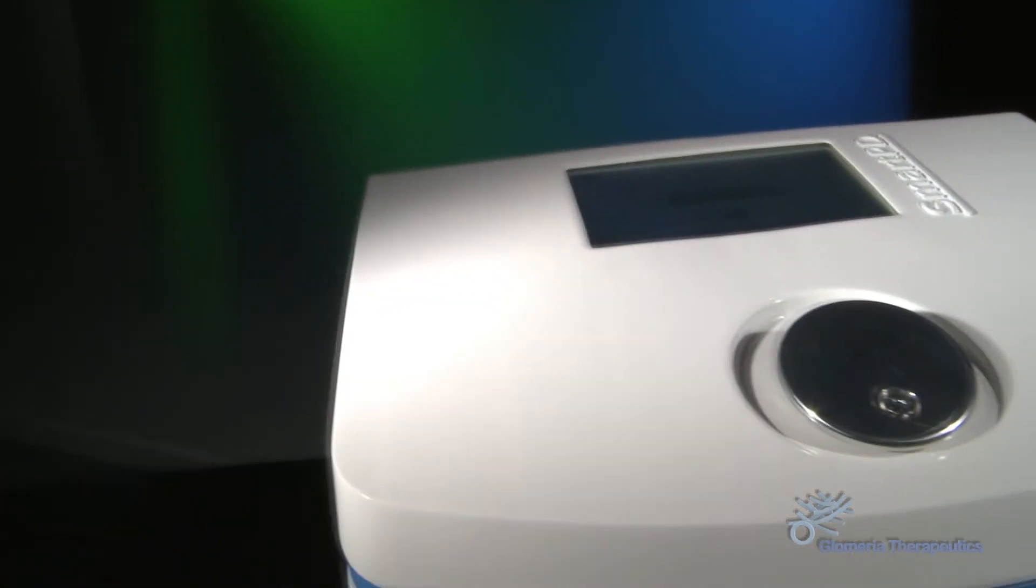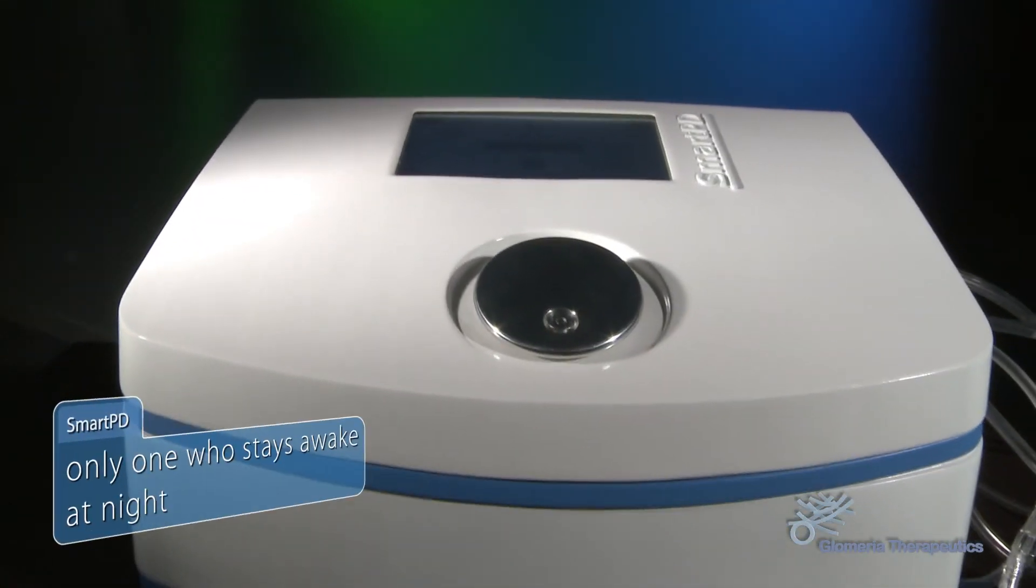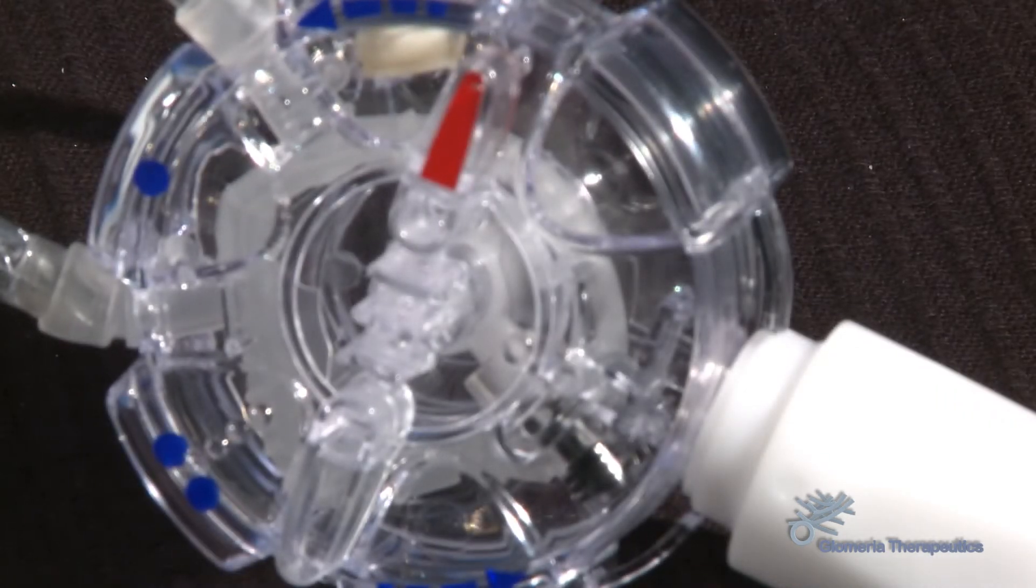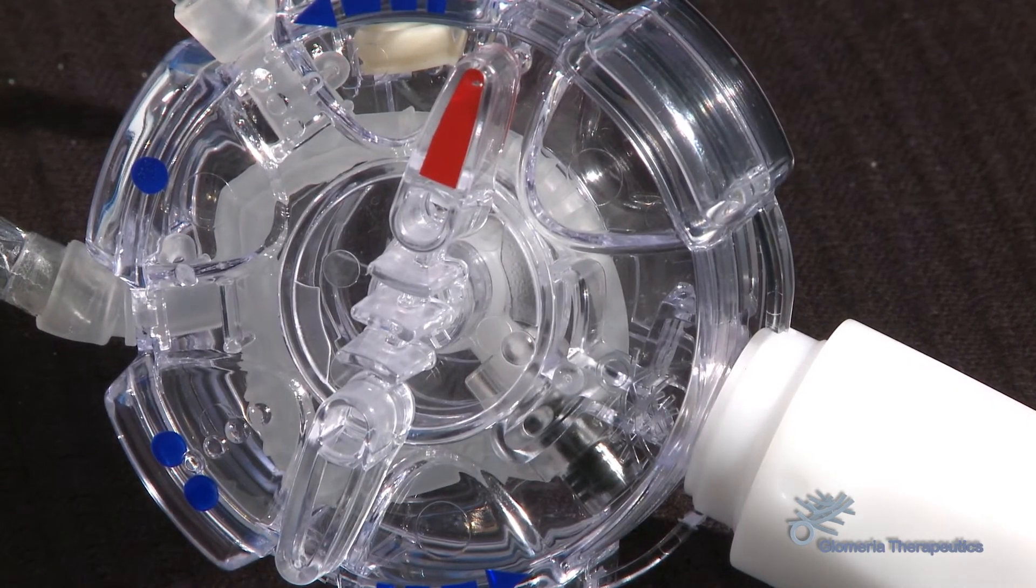The engineers at Glomeria Therapeutics designed SmartPD to be the only one who stays awake and vigilant at night. Patients should receive no less respect than a guest in a luxury hotel.